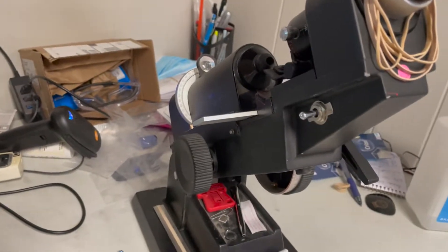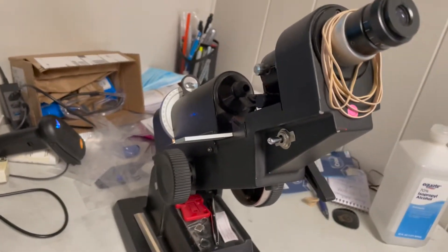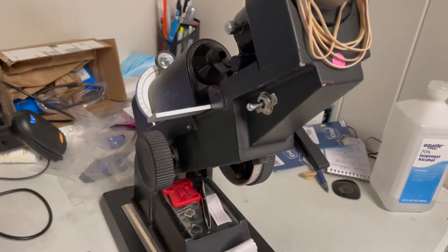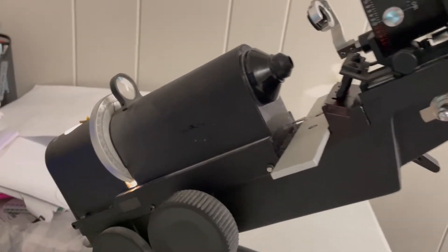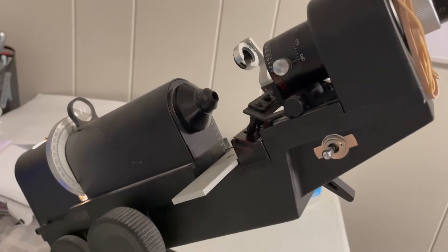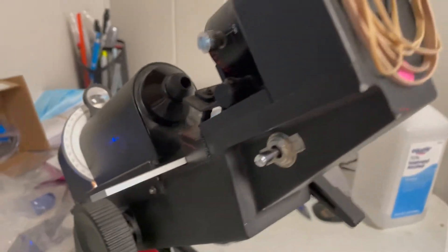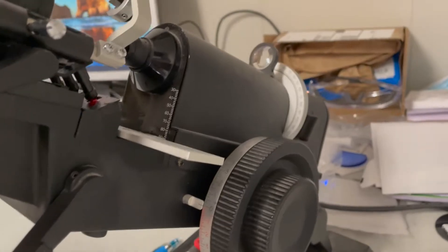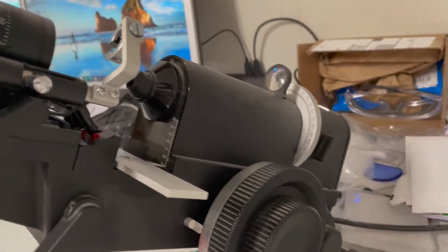All right and here we have the Marco 101 and I'm going to give just a brief overview of this lens meter. Even if you don't have the exact same model, everything will still be applicable.